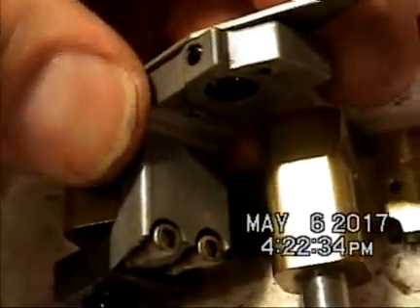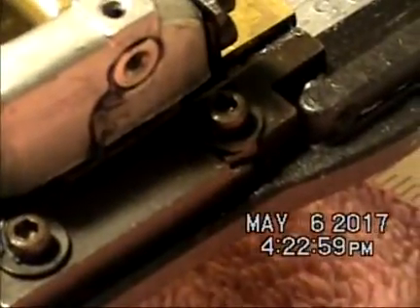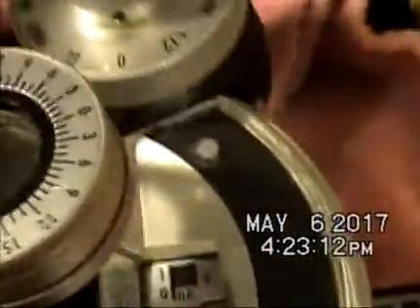This is the top bracket of the back of the phoropter. I think I have pretty well documented what needs to be done to get this back together again, if I can just order the replacement part, whatever that costs. Then probably those two brackets at the top here which are cracked, which may or may not need to be replaced. And then straighten the PD rule, find out what's loose inside of here, unfreeze all the components, clean out the optics. Fairly big project.